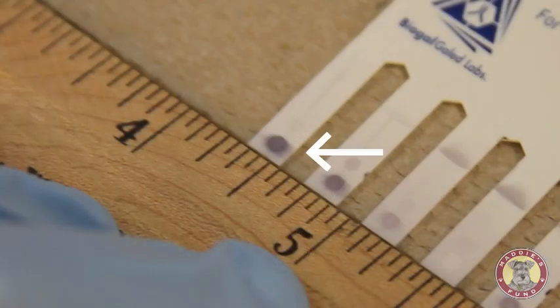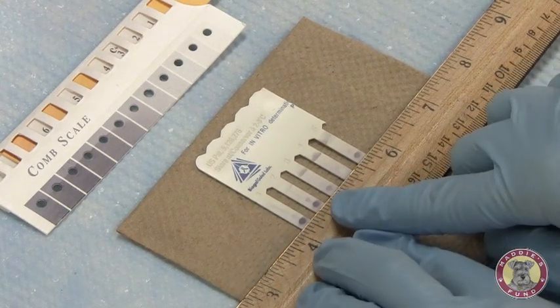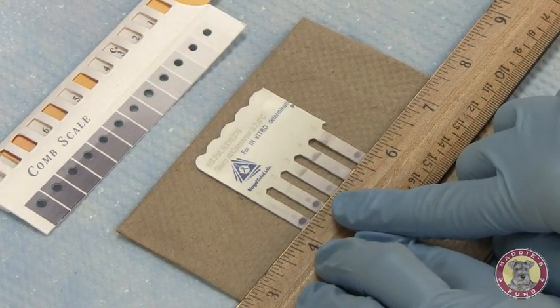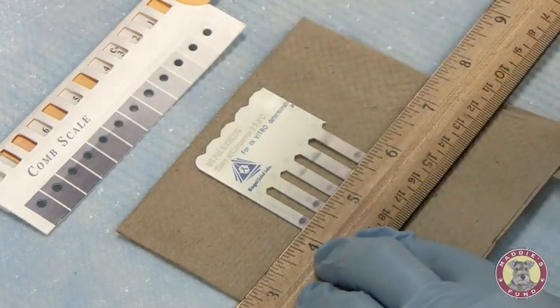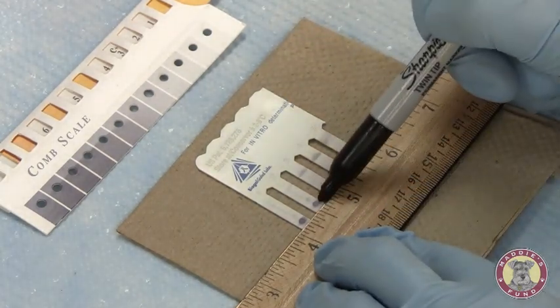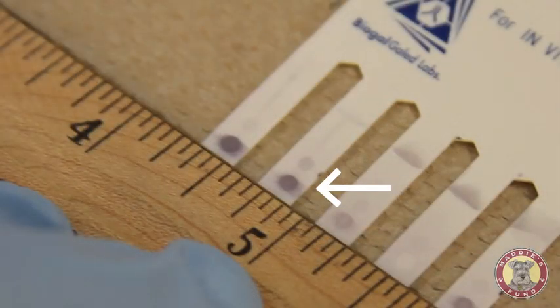There is a high level of antibody present within this tooth. Looking next, still on canine adenovirus but on tooth 2, sample 2, again you can see there's a very dark color development, much darker than the positive reference control. Again, I will call this a 6.